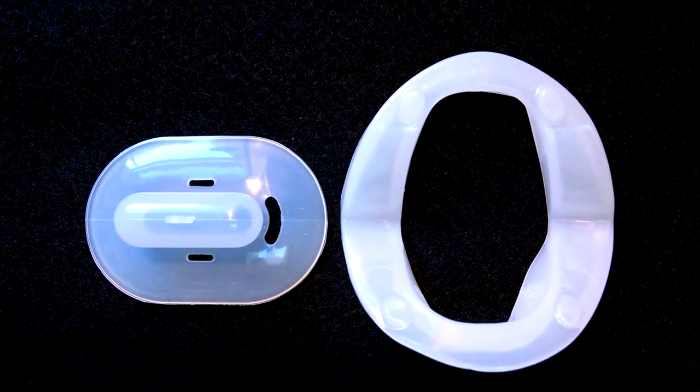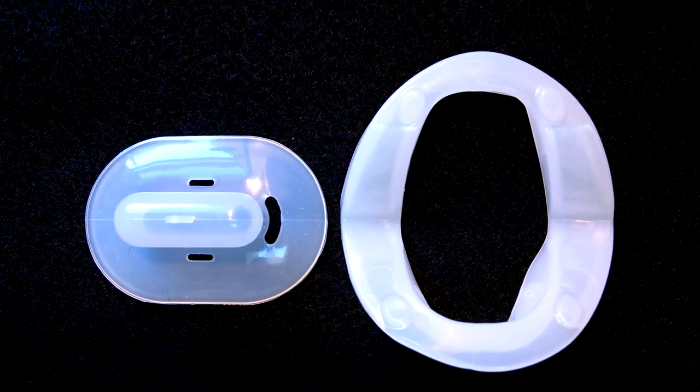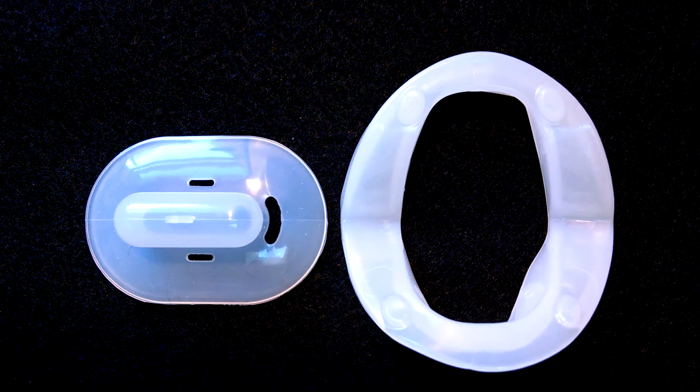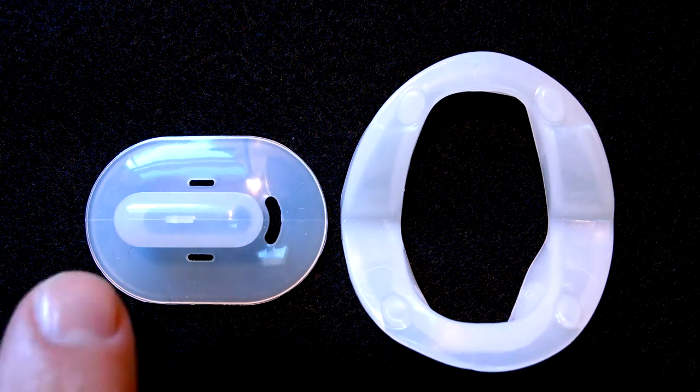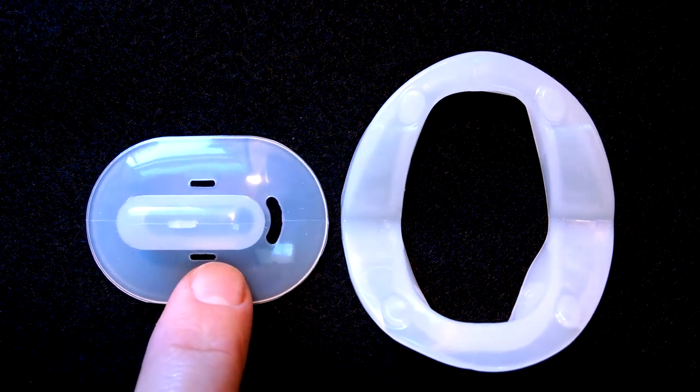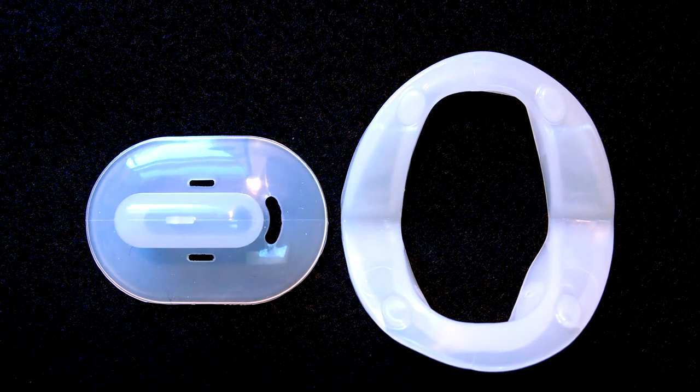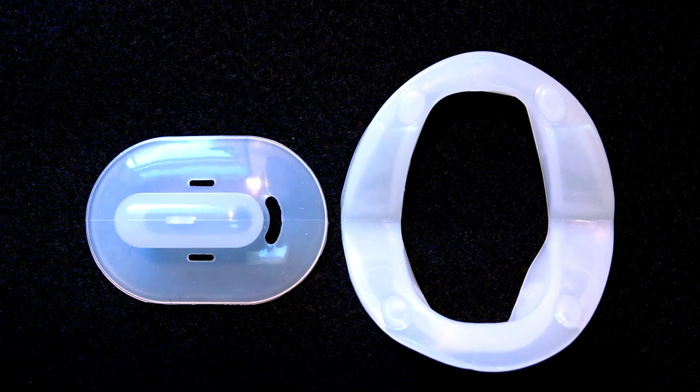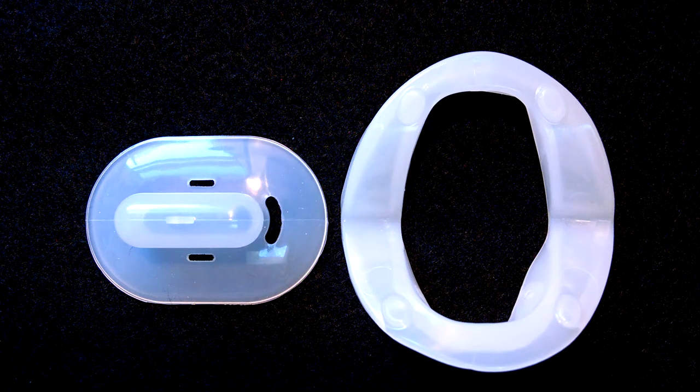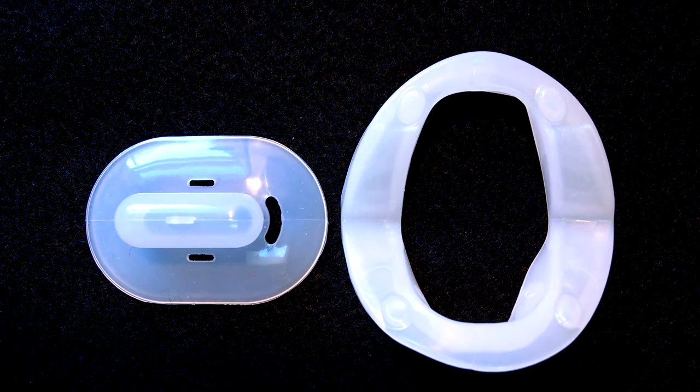Hey everyone, Bob Thomas here from snorermouthpieceguide.com. Today I'm going to do a comparison video between the Snorermender on the right and the Pacifier mouthpiece on the left. These are two completely different products, so I'm going to explain each one. We'll put them side by side and let you compare the two.